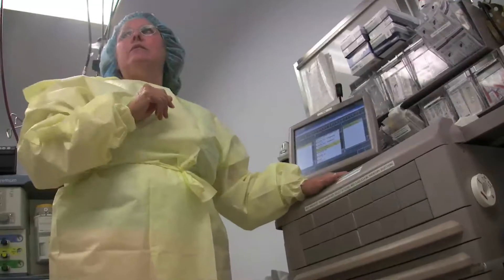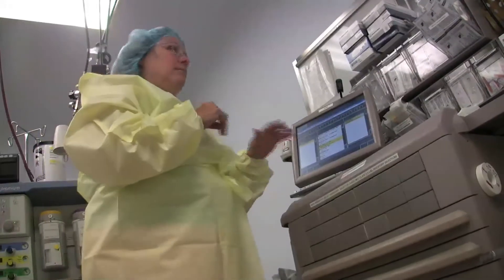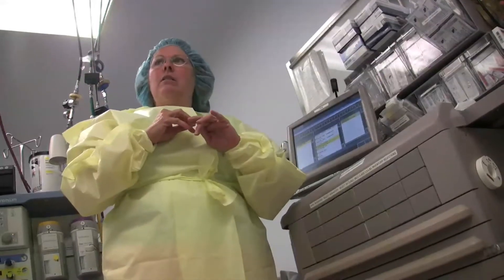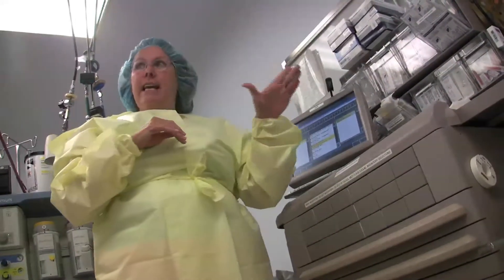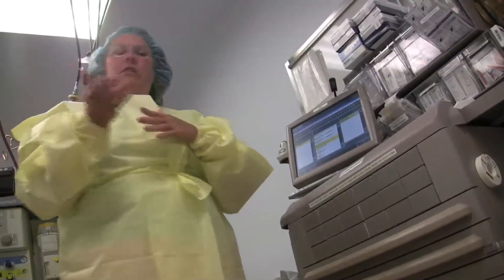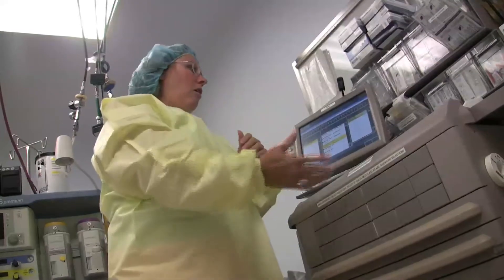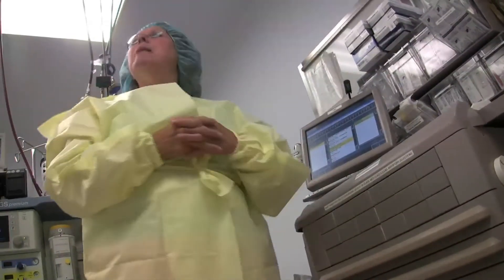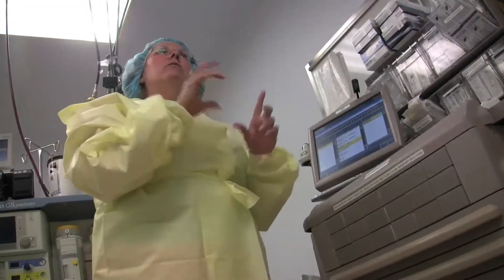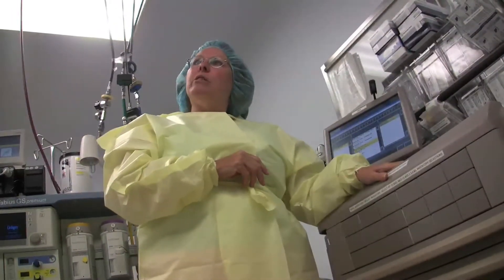I cannot cancel this function once I say dispense. And that's important because Mr. Daigle used that function. He would hit dispense and then say cancel. The drawer would open and he would be able to take that drug, change it, and bring it back. Now, no matter what I do, I can't make it do that. The official term was 'cancel removal' — that's not allowed on this machine anymore. It just won't do it. It doesn't have the capability.